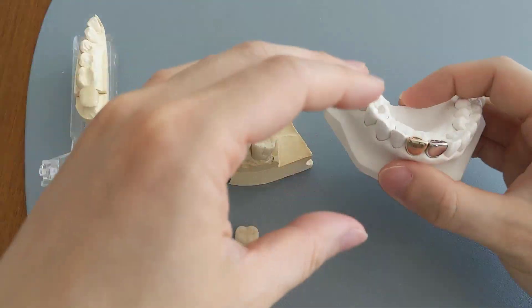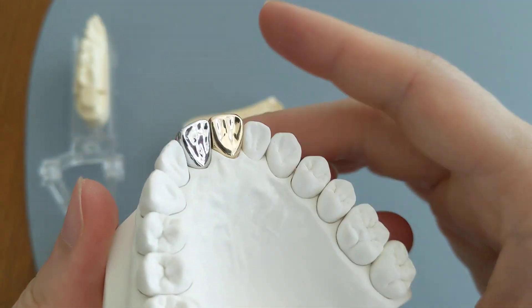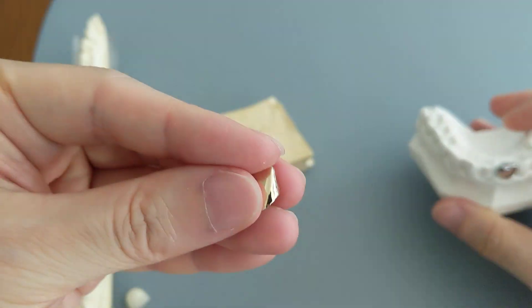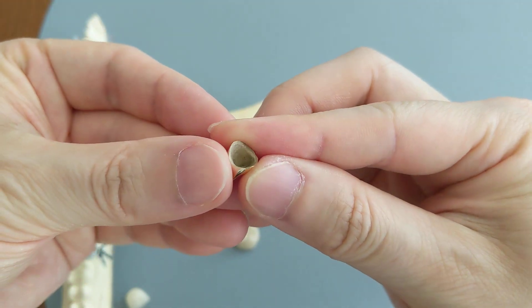Let's move on to the gold crown. Gold right there, nice and yellow. I'm going to rotate it so you can kind of see. It's very shiny — you can even see the reflection right there. It's yellow underneath.